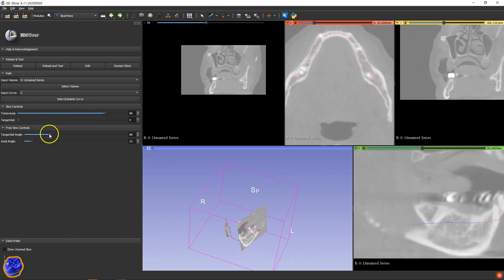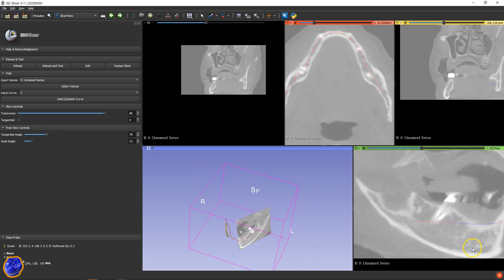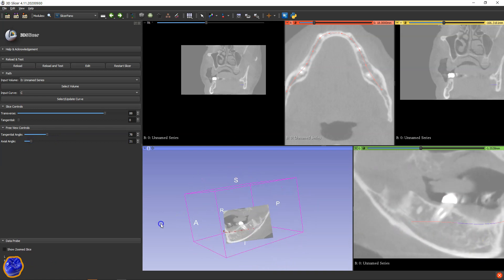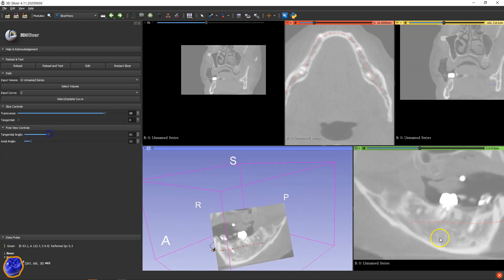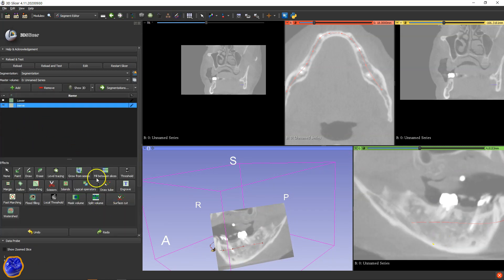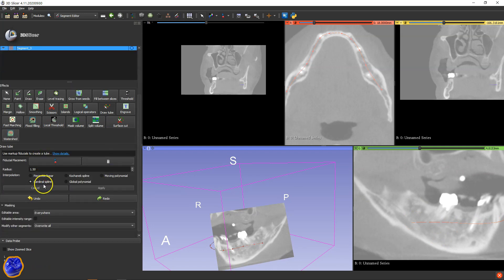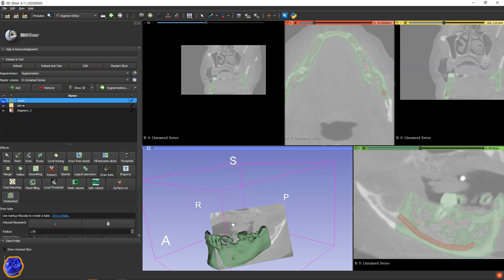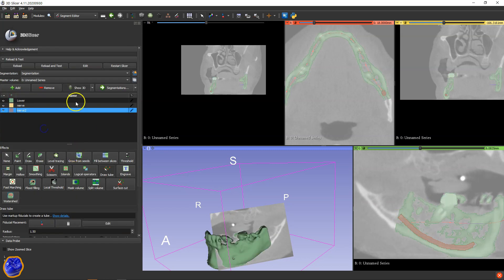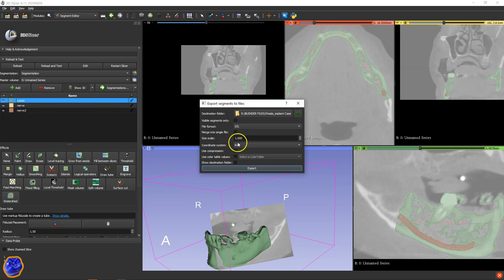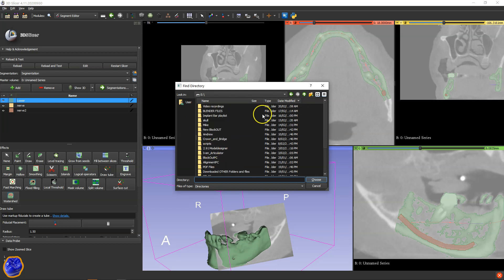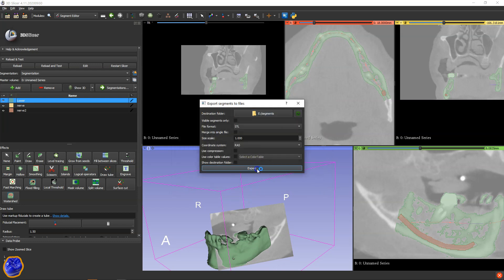Find yourself a good location. Here we've got the exit and we can see all the way across. Get yourself a tube, make a new segment and then outline it. Then I'm going to name it. And then we're going to export this. Make sure that the RAS is selected. Find yourself a suitable folder that you can find these files. Choose that folder and export.